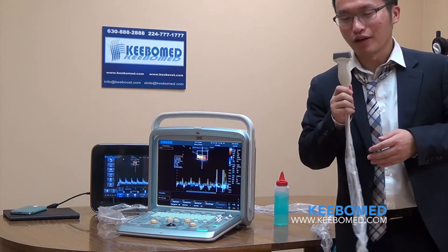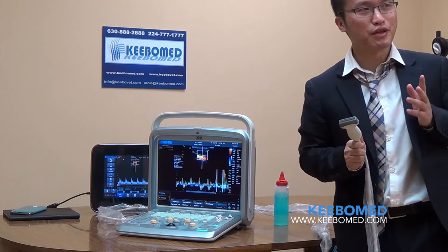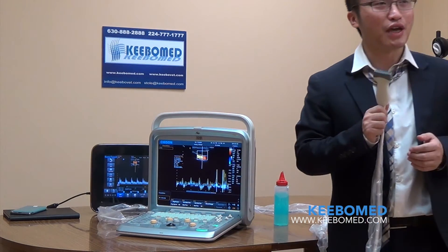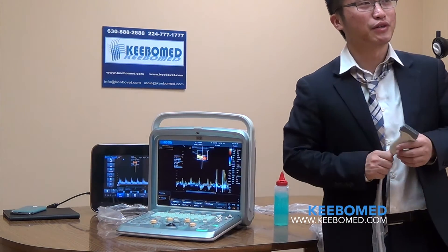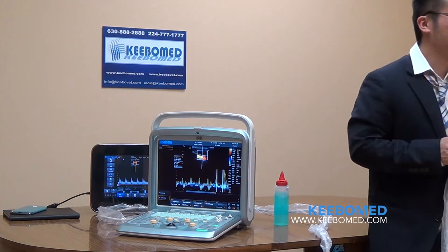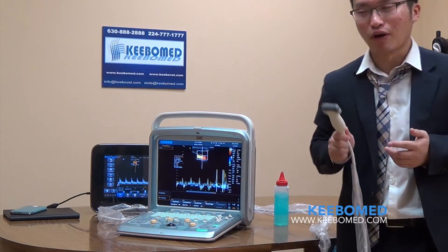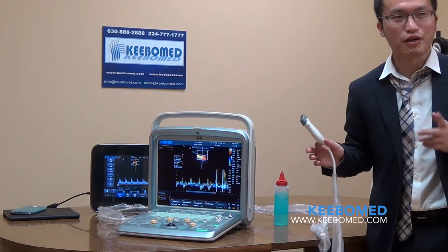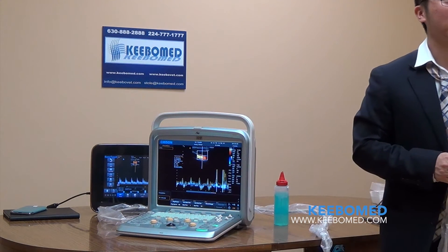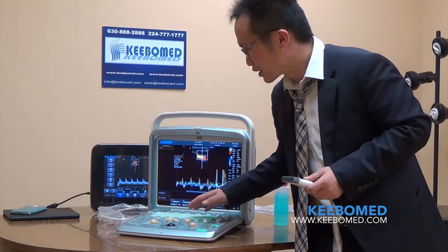For the Q9, we can support a high-frequency linear probe up to 18 MHz. Compared to some competitors like Mindray, which can only go up to 15 MHz, the Q9 goes up to 18 MHz.